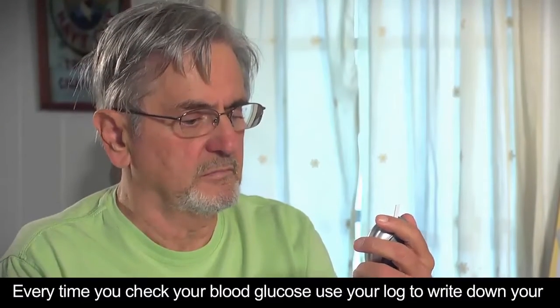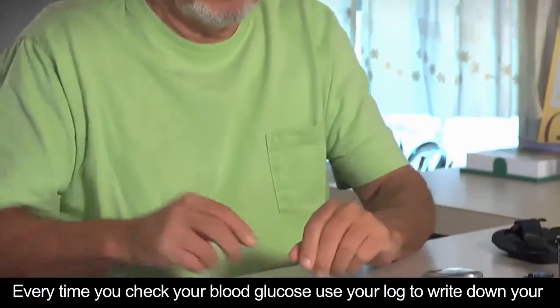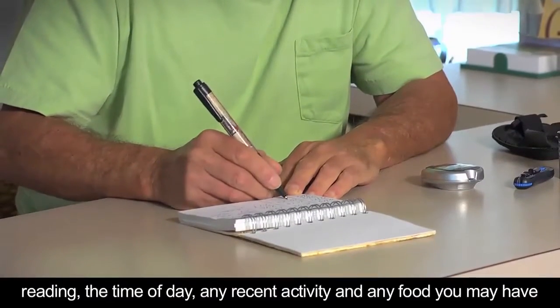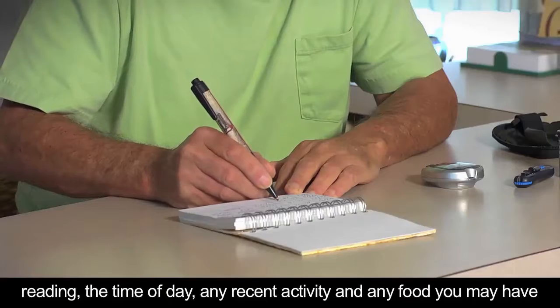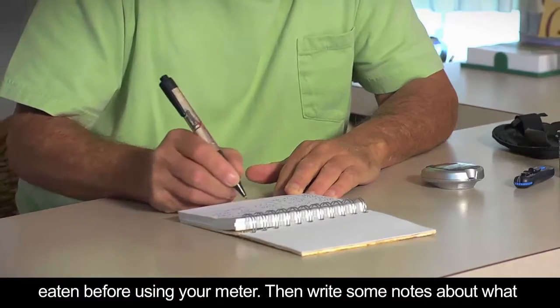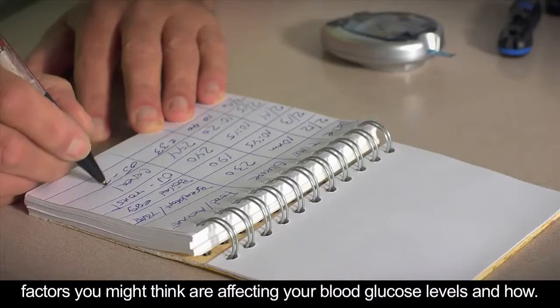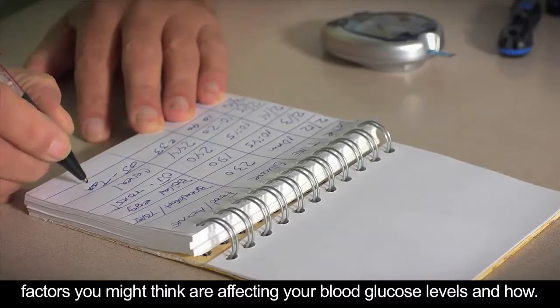Every time you check your blood glucose, use your log to write down your reading, the time of day, any recent activity, and any food you may have eaten before using your meter. Then write some notes about what factors you think might be affecting your blood glucose levels, and how.